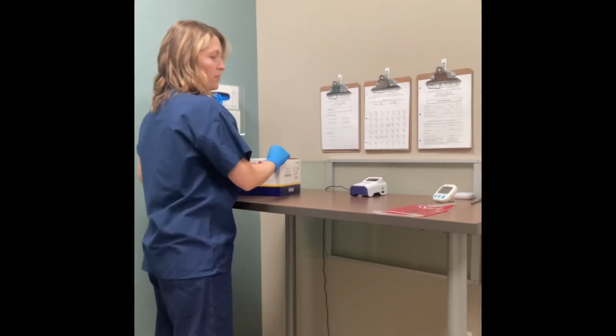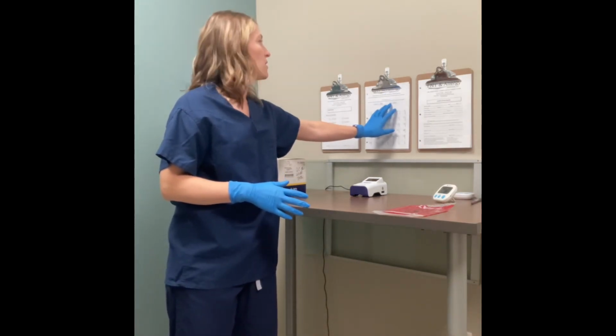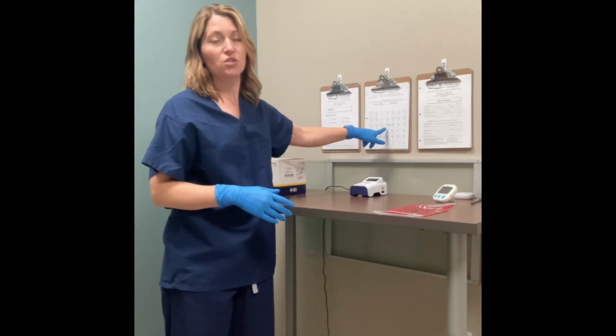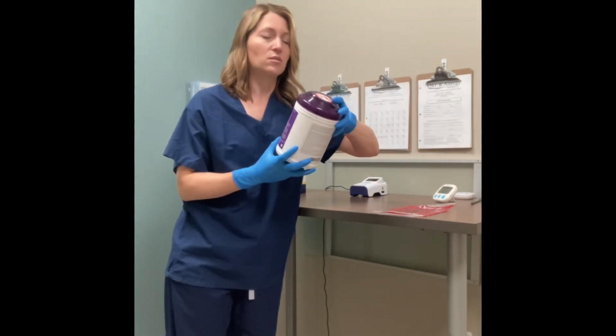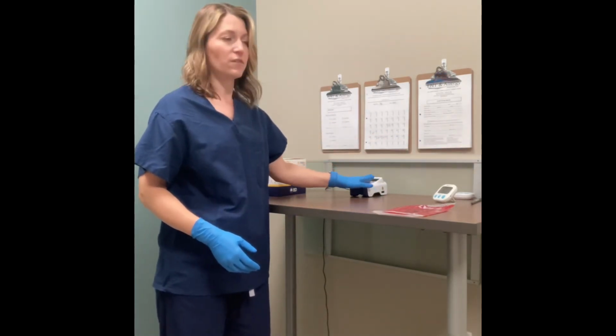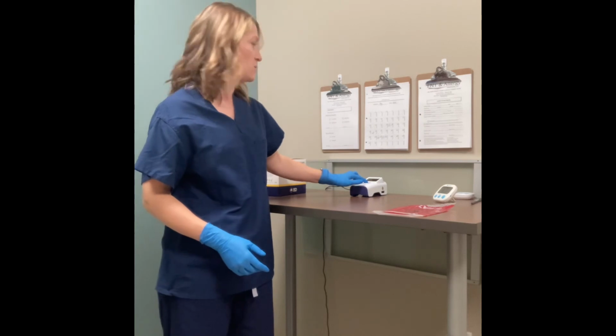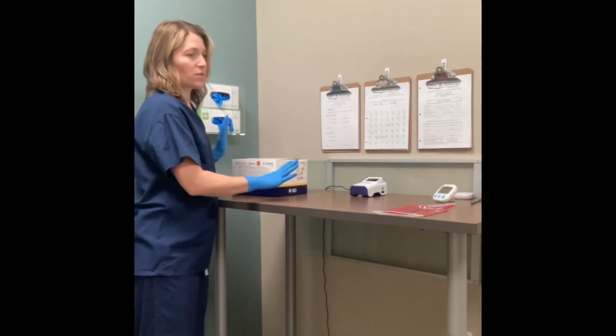And again, remember that if this is the last test of the day, make sure that the hygiene log is filled out. Put your initials on the day and take a purple topped cloth and wipe down everything, the timers, including the device. Press and hold the device button to turn it off. If you don't, that's okay, it will time out on itself. Put this away and then you're done.